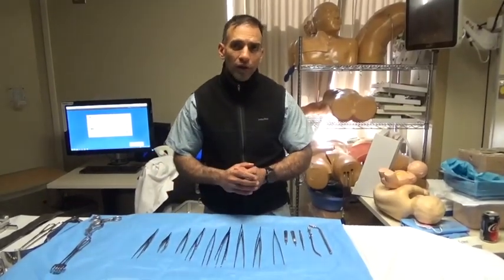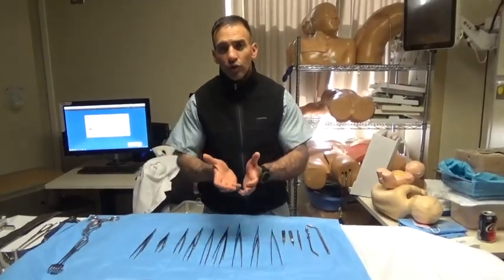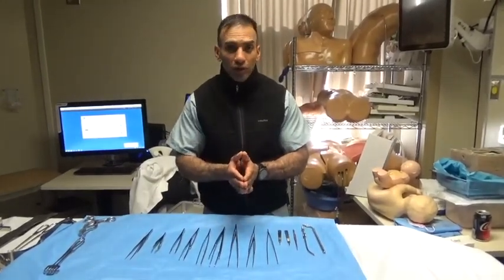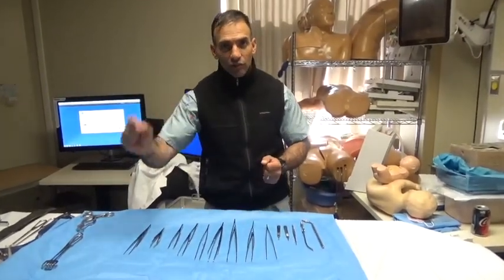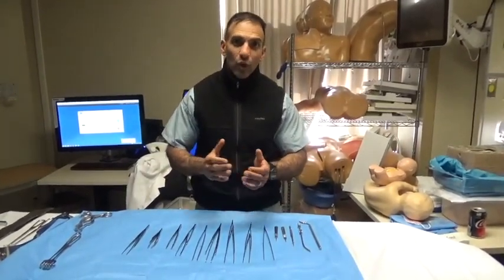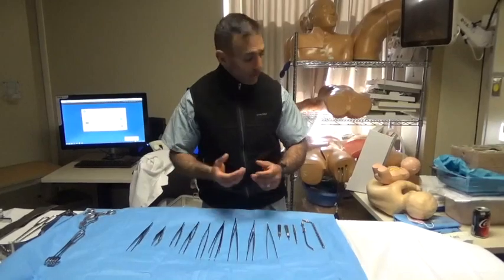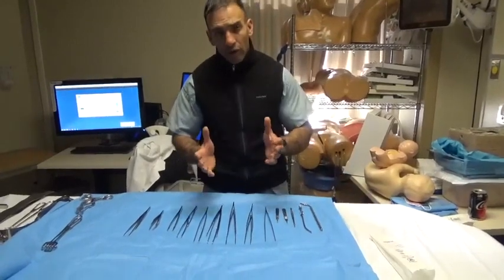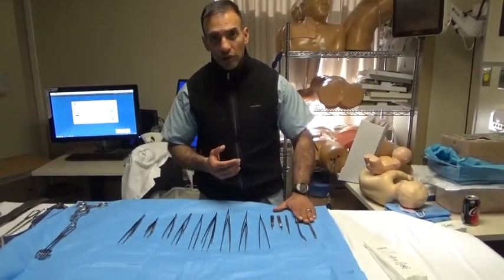There are cultural and regional differences in nomenclature. My descriptions on what instruments are called and their eponyms may not be completely inclusive. I'll do my best to talk about common variations, but if there's a special name at your facility, my apologies if I don't hit every eponym. We start with the peel packs or paper wrap packages that come in our sets, which contain your forceps or pickups, knife handles, and specialty suctions.